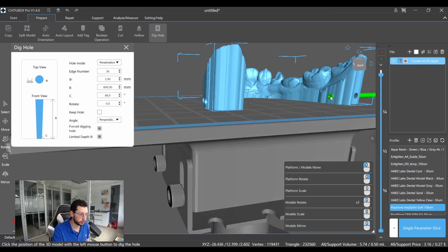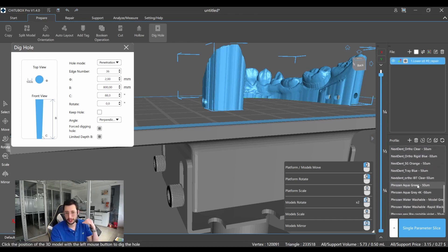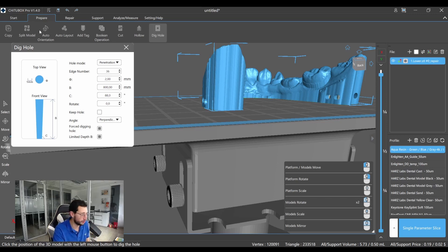Finally, when we are done, you have to choose the correct profile. It's very important to have proper exposure and a proper profile. If you don't have a proper profile, you'll need to do some extra steps to find the perfect exposure — but that's going to be something for a future video.